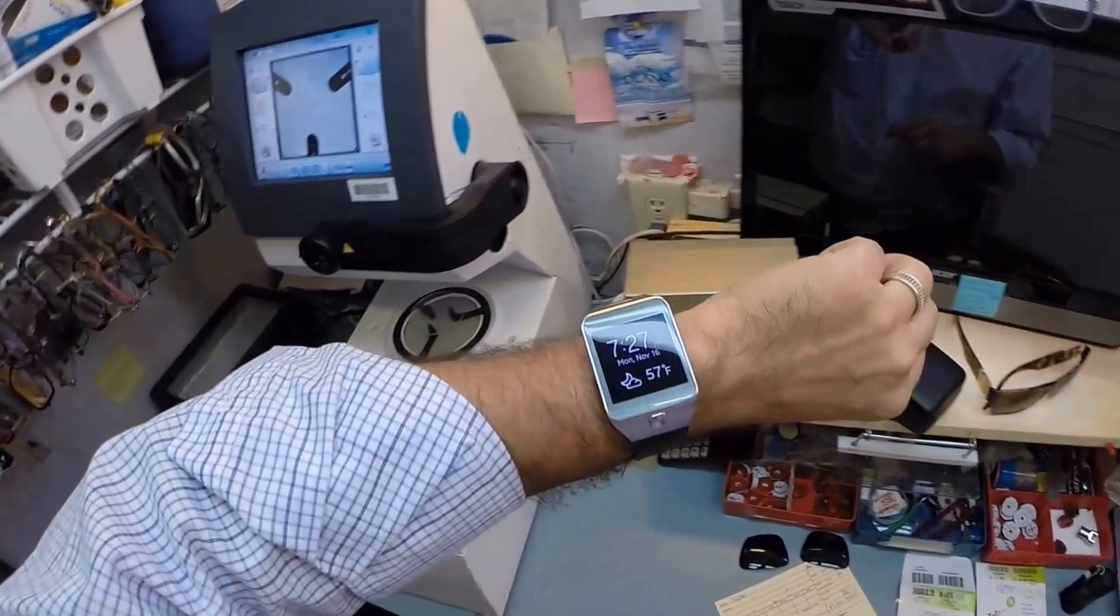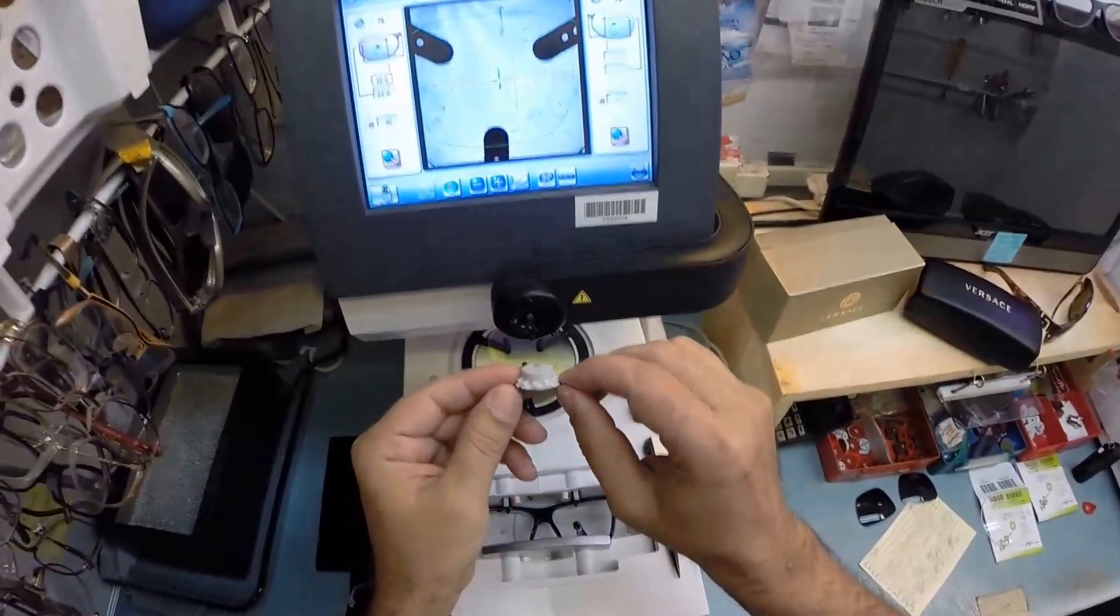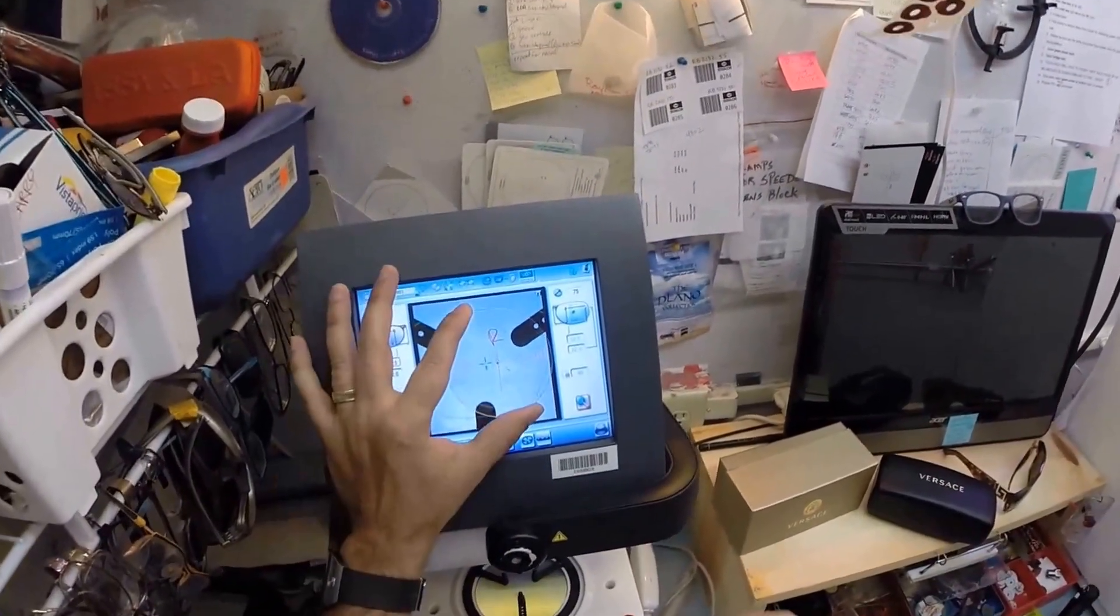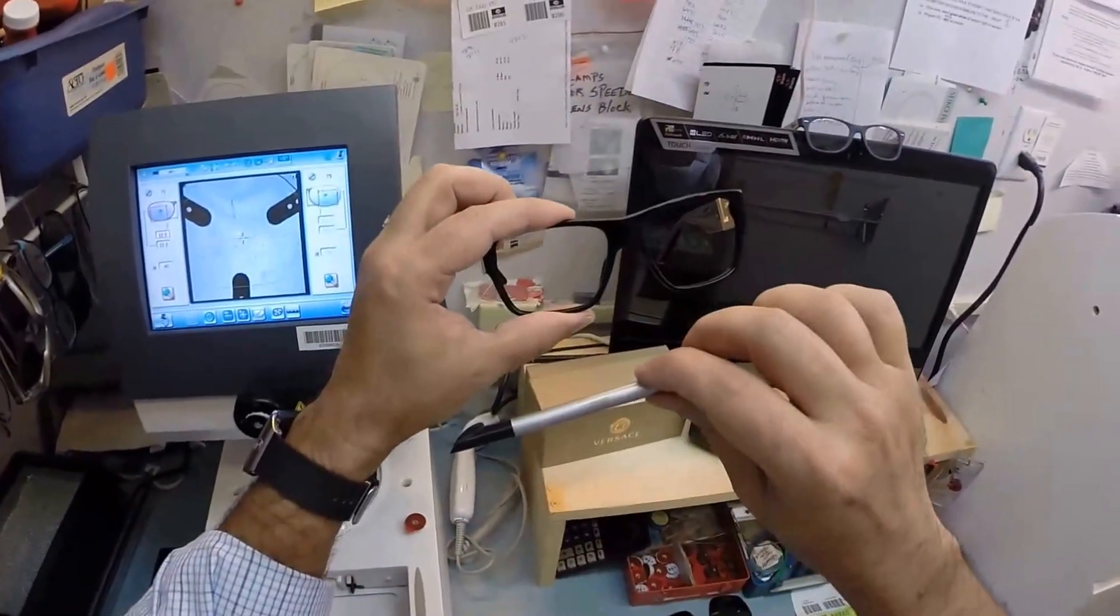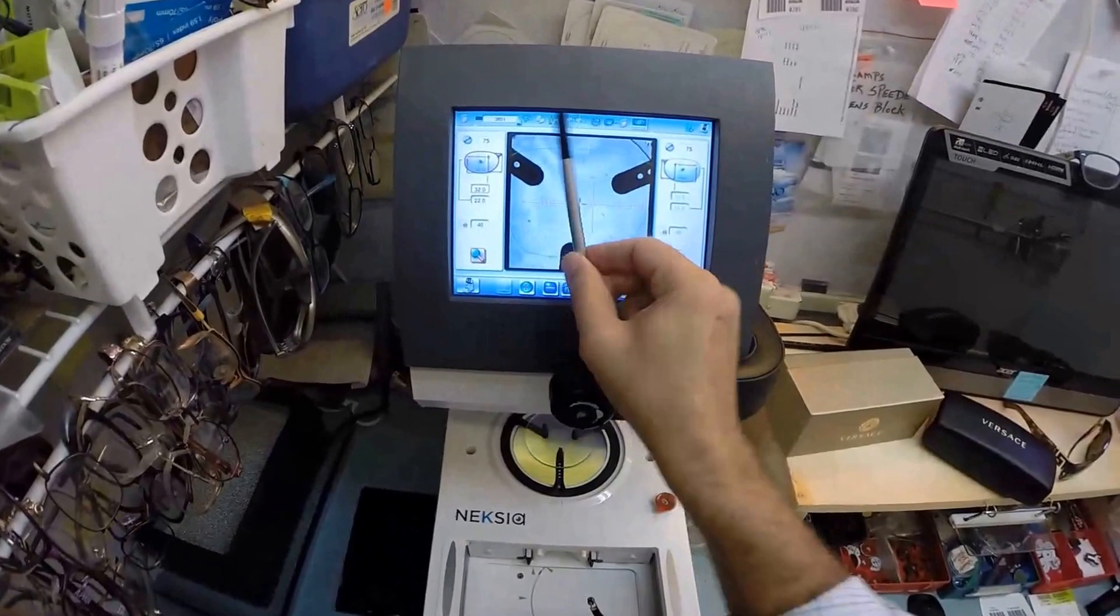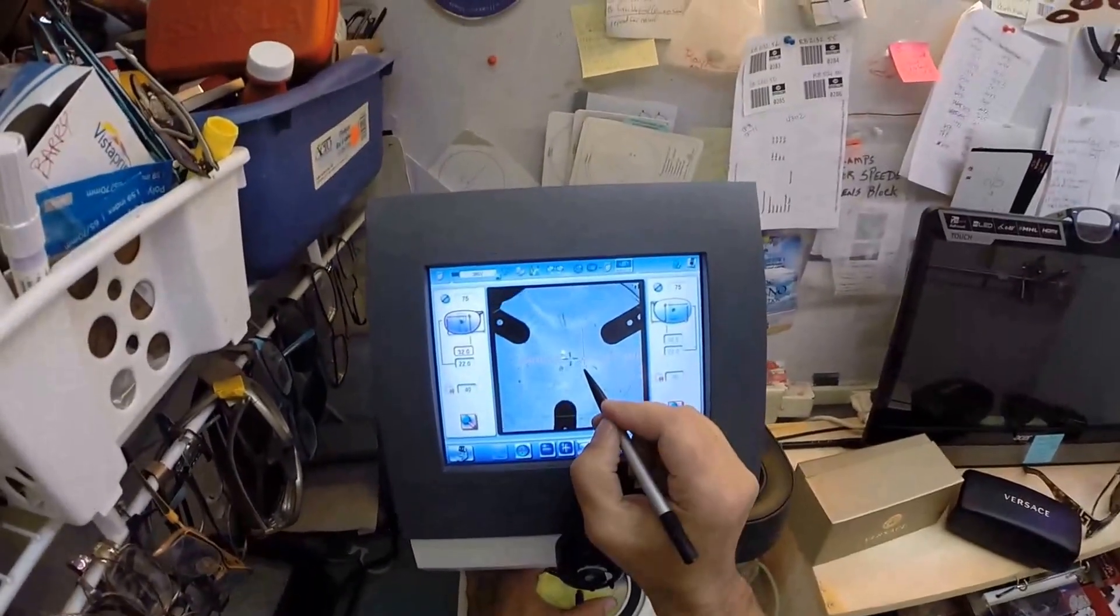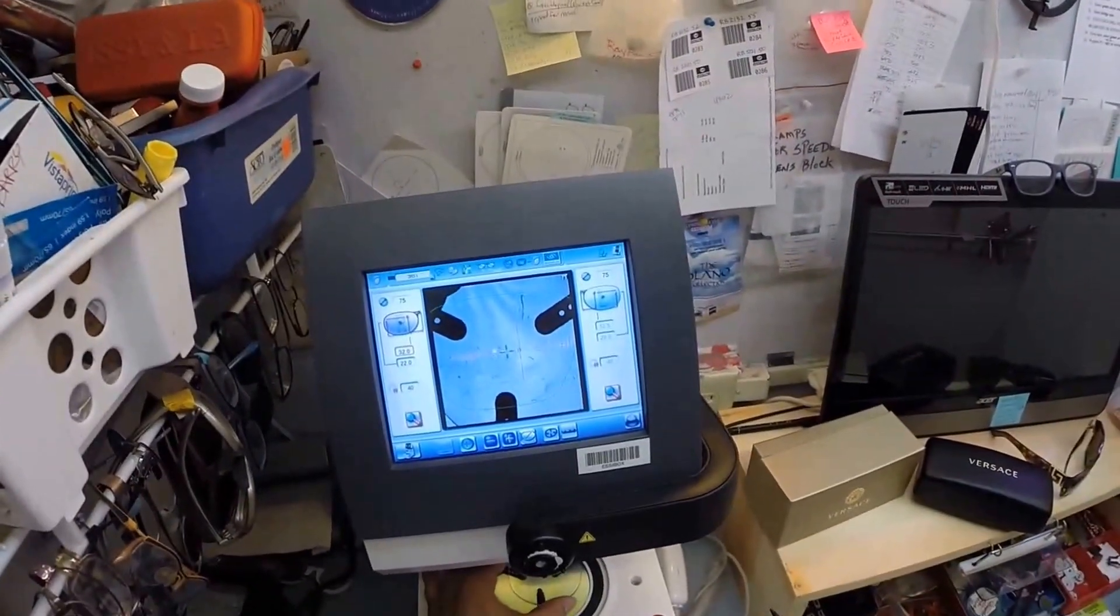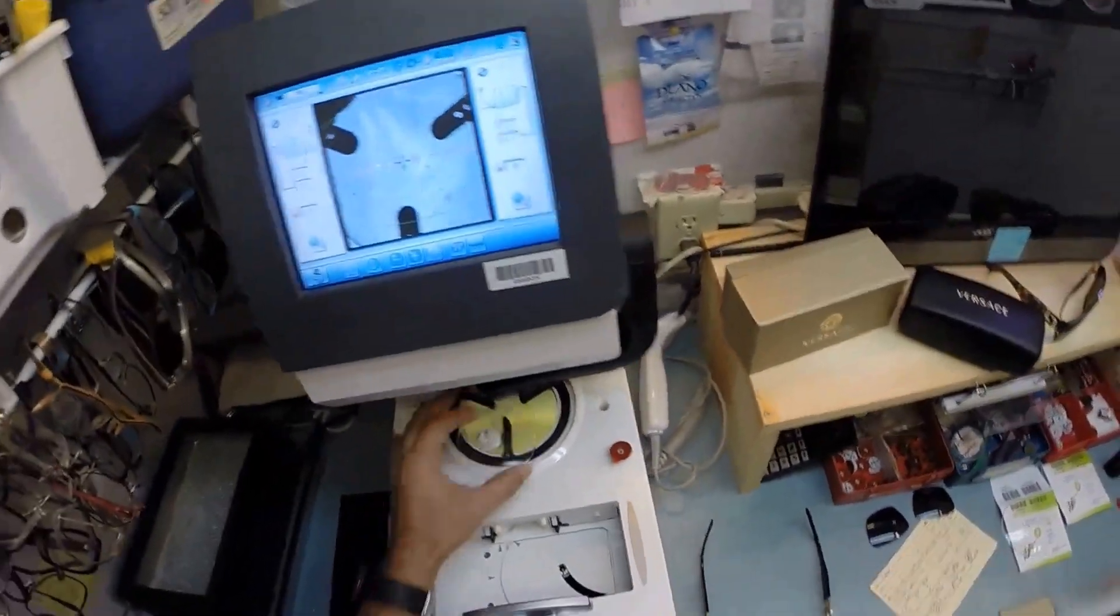The first time is right about now. This magnet is going to marry itself to something magnetical in the arm to hold it in place. I'm going to place that red dot right there. This blue cross is the geometric center of your frame—measured both vertically and horizontally. Your eye is just inset from there. I'm going to hit that button and the arm will come down and place the block onto the right lens.